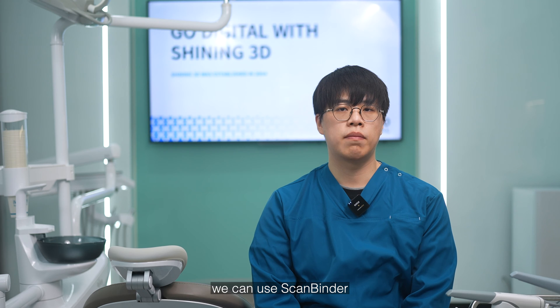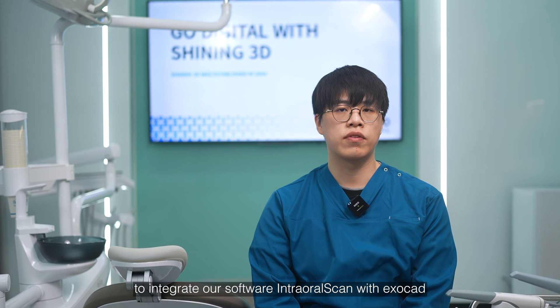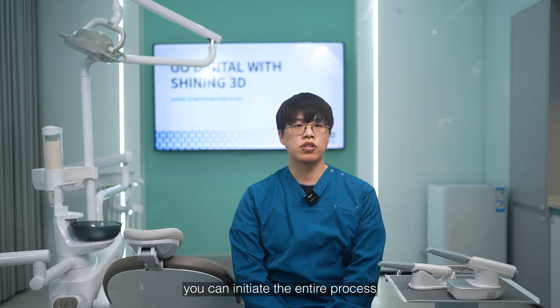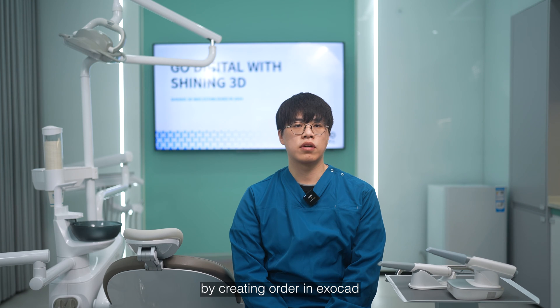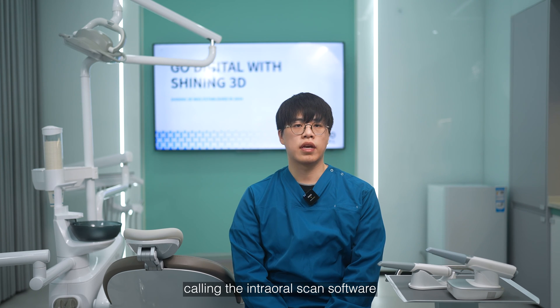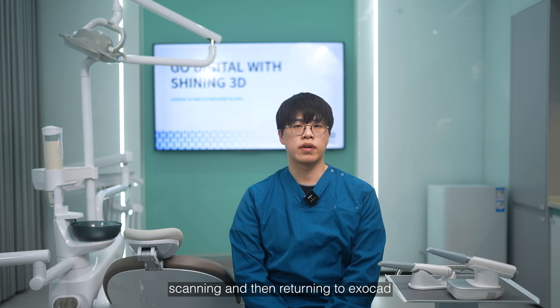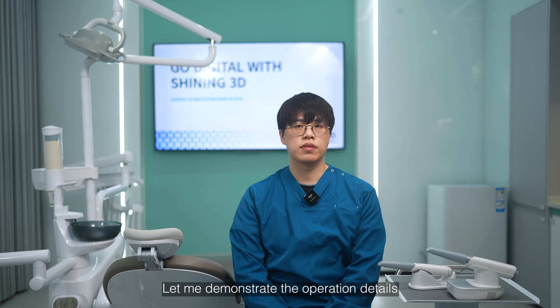First, we can use ScanBinder to integrate our intra-oral scan software with ExoCAD. By doing so, you can initiate the entire process by creating orders in ExoCAD, calling the intra-oral scan software, scanning, and then returning to ExoCAD. Let me demonstrate the operation details.